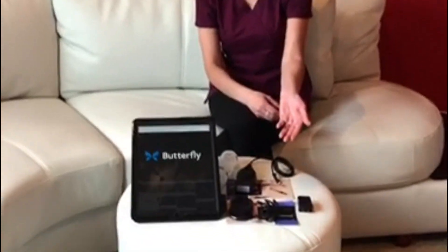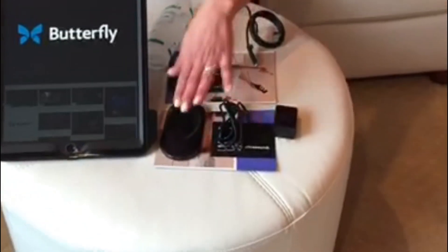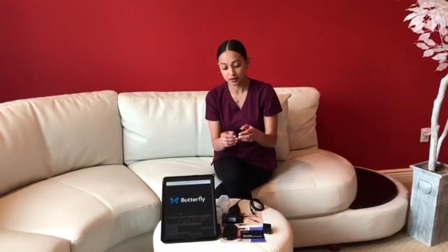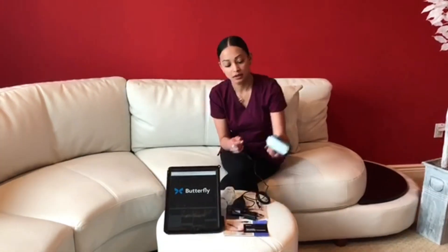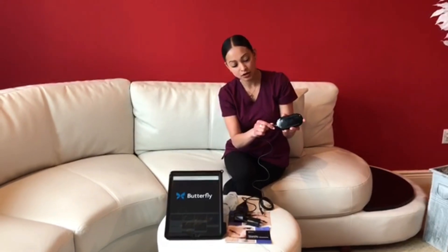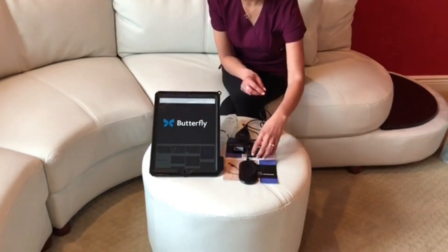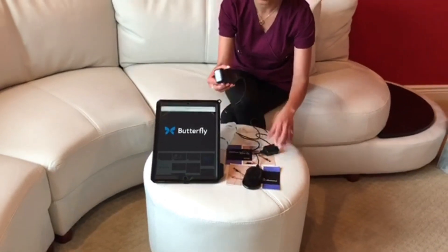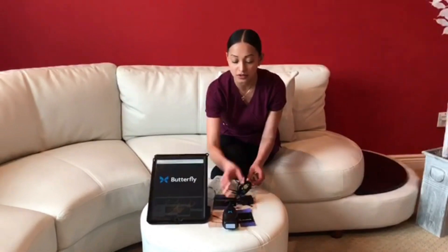This is just the simple charging setup that's needed: you have your wall adapter, your cord, and your charging plate right here. You connect the cord into the charging plate, and then the probe sits on it very nicely and very sturdy. It looks very sleek actually — not too bulky, not too much going on, very simple.